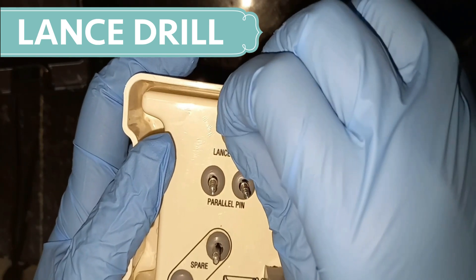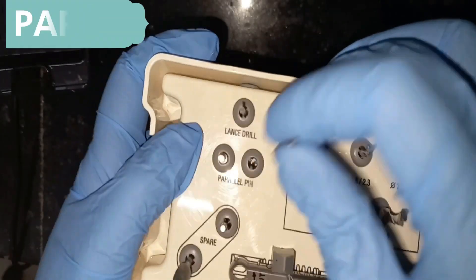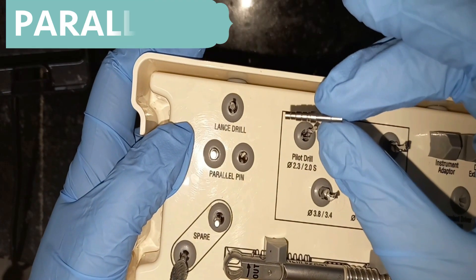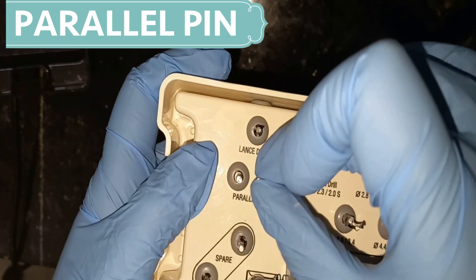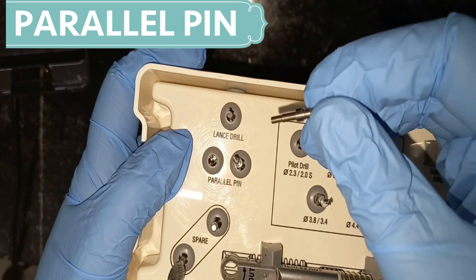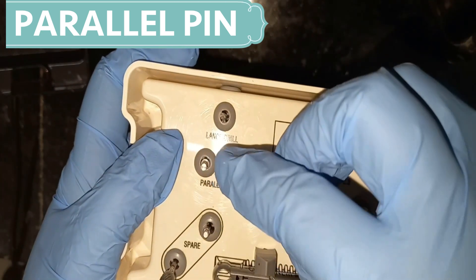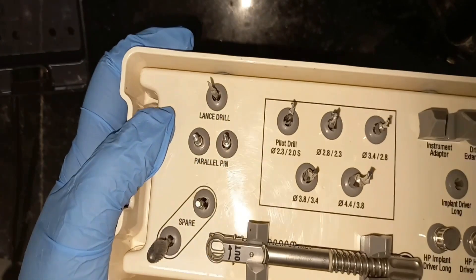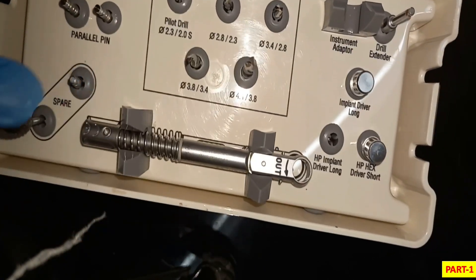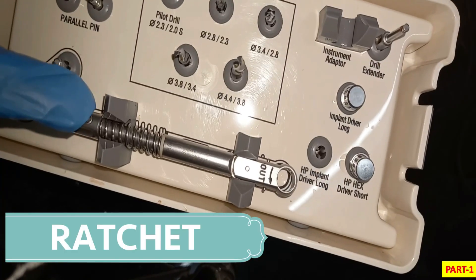Then we have parallel pins. These pins act as a guide for the evaluation of the osteotomy position and angle. If you are going to place two implants, we place these pins on the preparation site so that we can see the parallel placement of the implants.